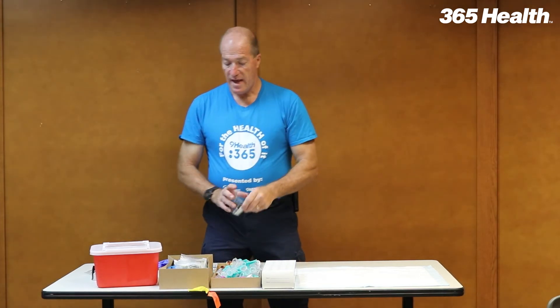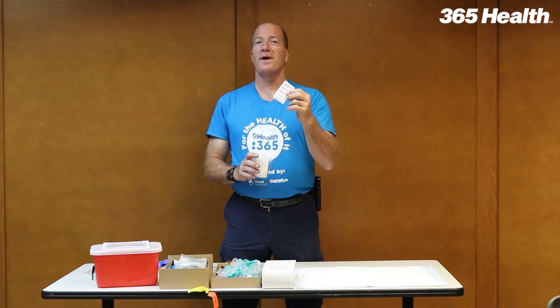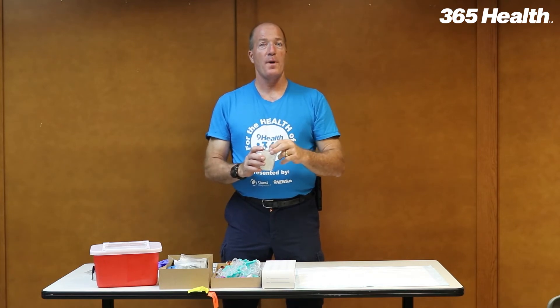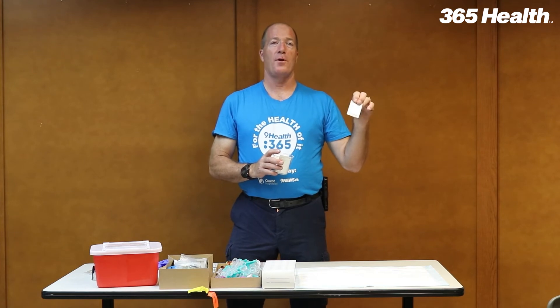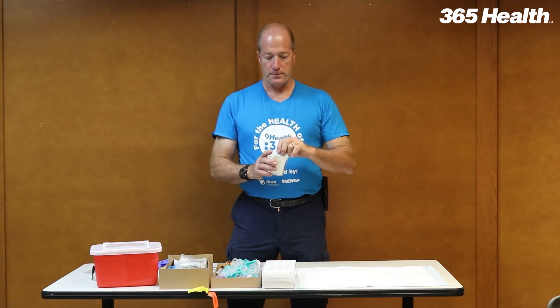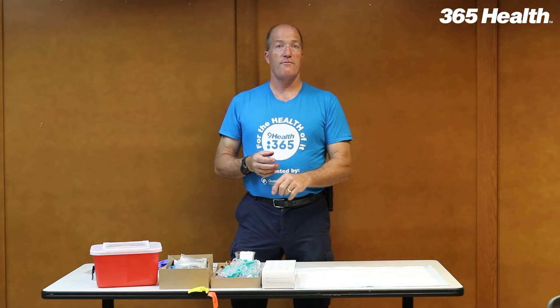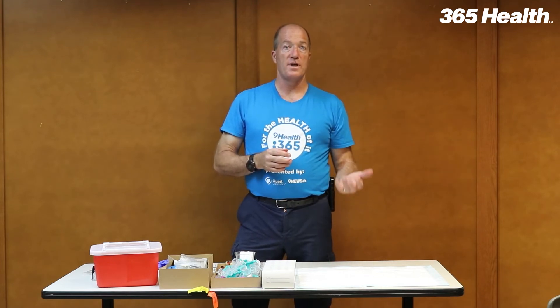In addition to that, I put a cup on the table and put the online registration stickers in the cup, because this was the number one thing people would drop on the way to see the phlebotomist and then they wouldn't have stickers. So if they're on the table, we can hand the stickers out there. All the information on those stickers will be attached to the participant's form.